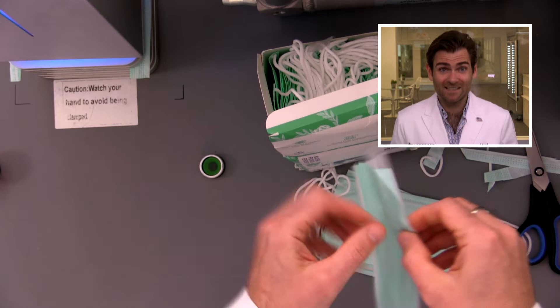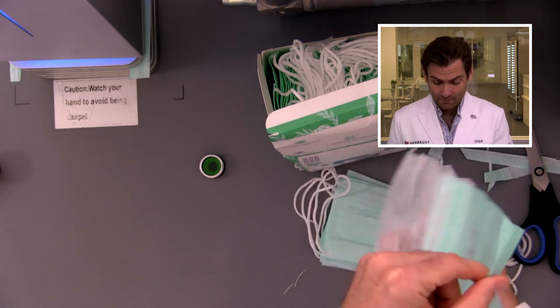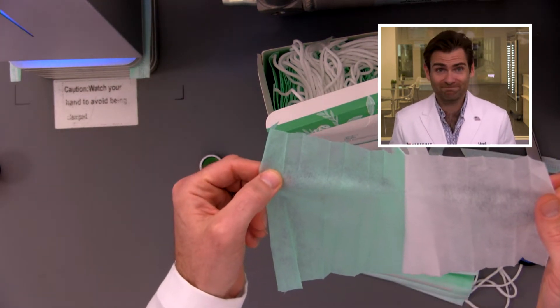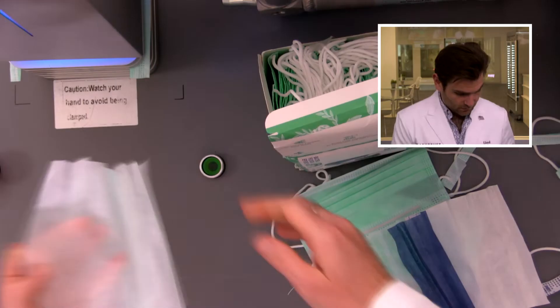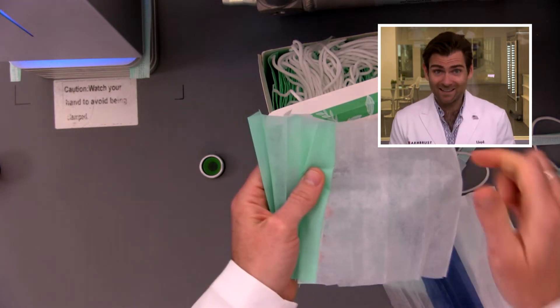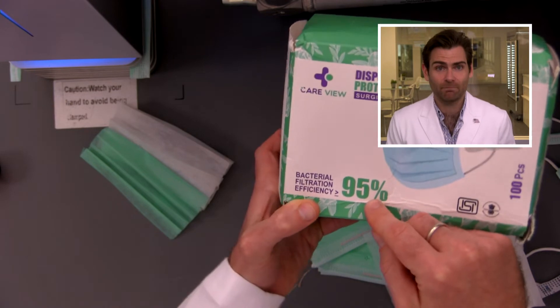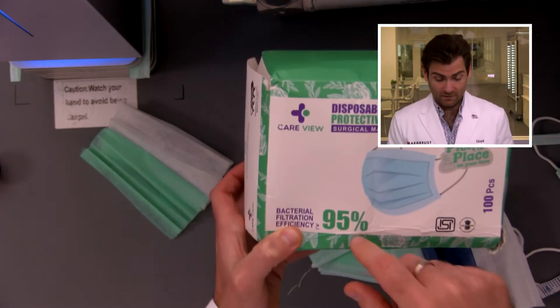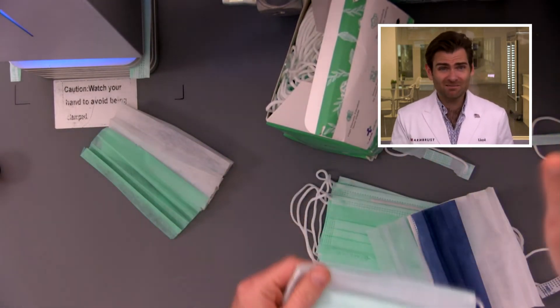Spunbond — this is the second time I've seen this in India. I have never seen this anywhere else in the world, not in China, nowhere. Three layers of Spunbond. No Meltblown. That is just shocking to me — that is just evil. There's the middle layer; look at it, you can see through it. That's a sign — that's not going to protect you. There is zero chance this is 95% PFE or BFE. This isn't going to block anything. This is a terrible mask. Do not use this — full stop, in my opinion. This is not a mask that's going to protect you.